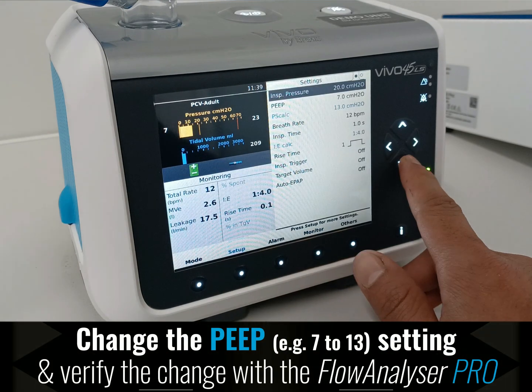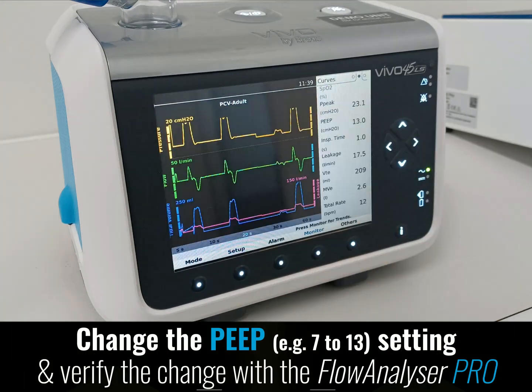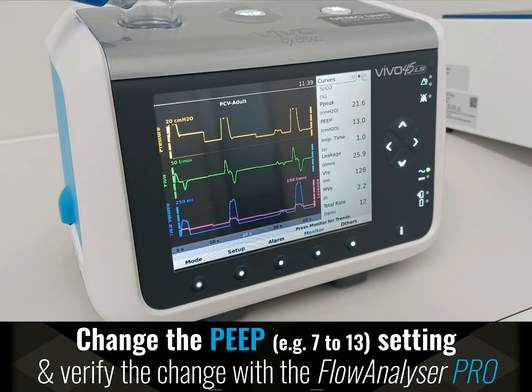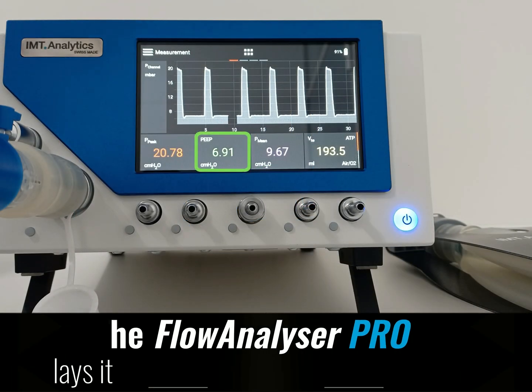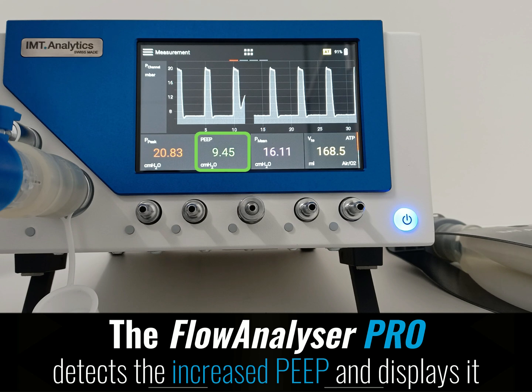Change the PEEP setting from 7 to 13, and verify the change with the analyzer. The Flow Analyzer Pro detects the increased PEEP and displays it.